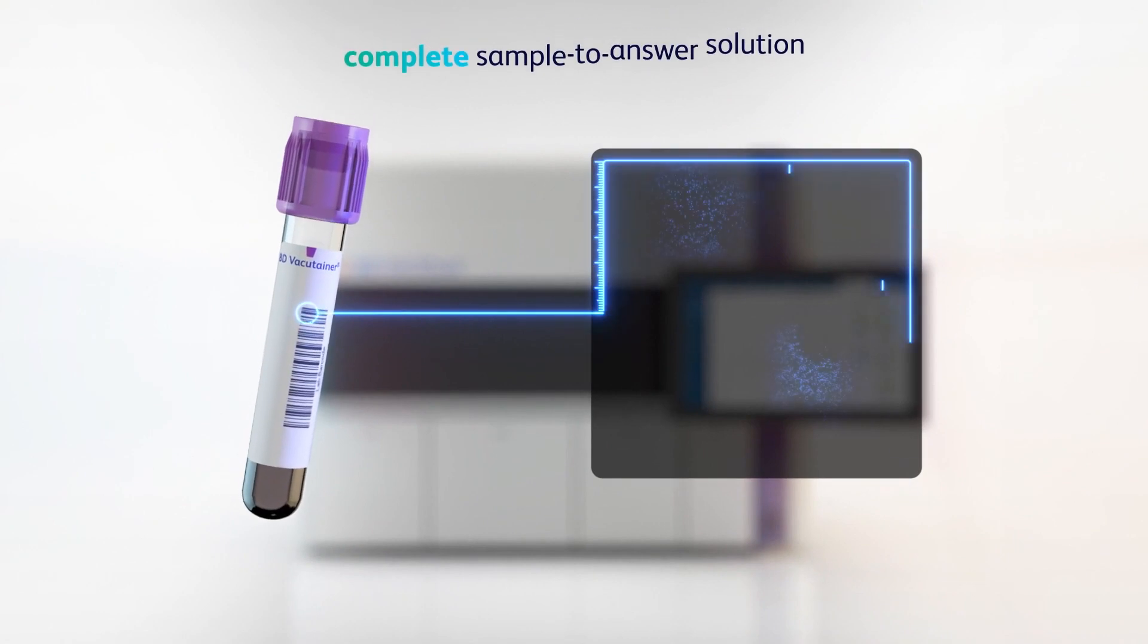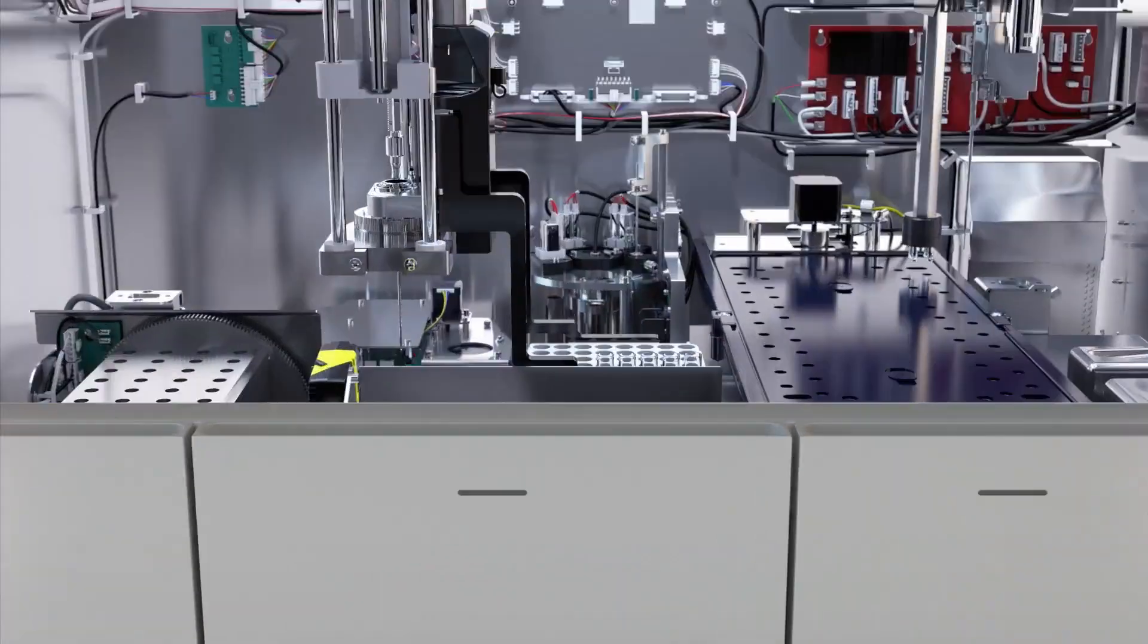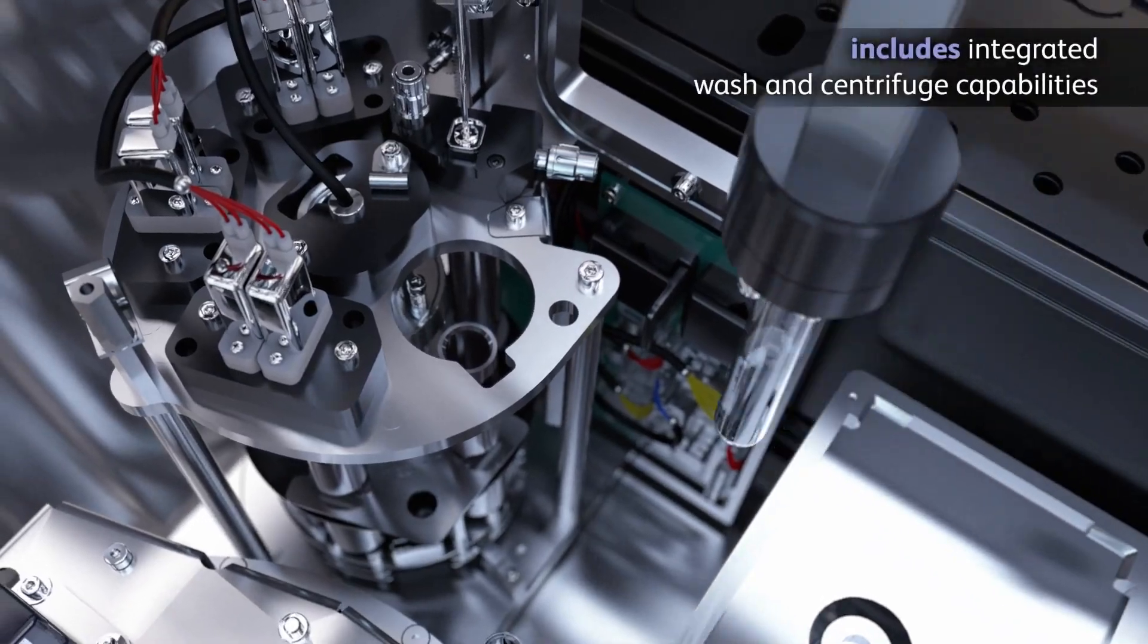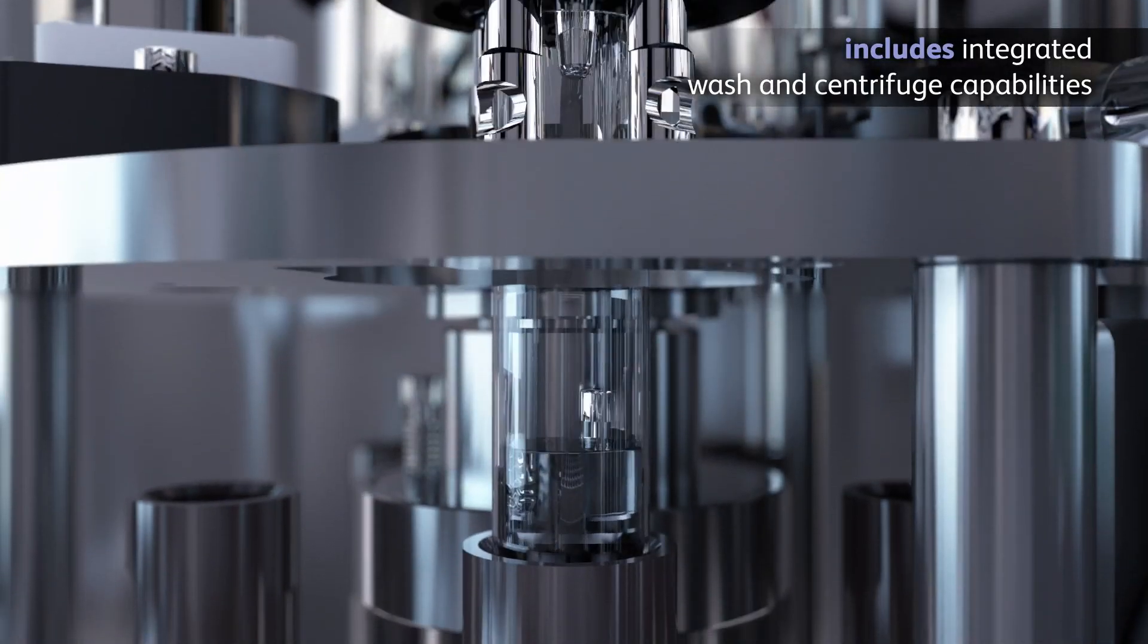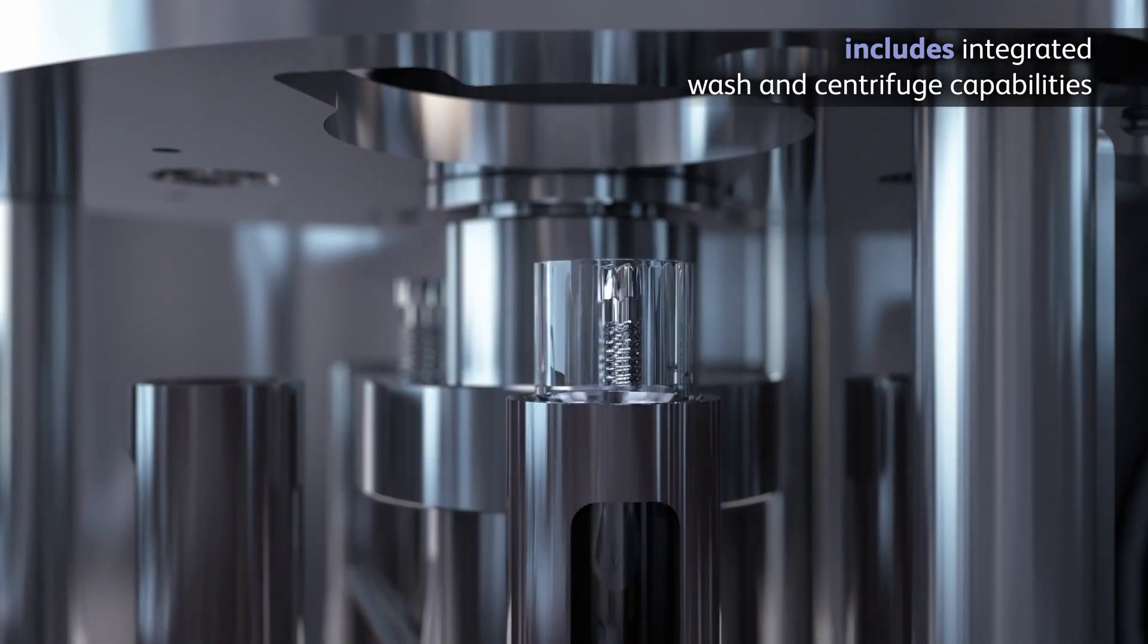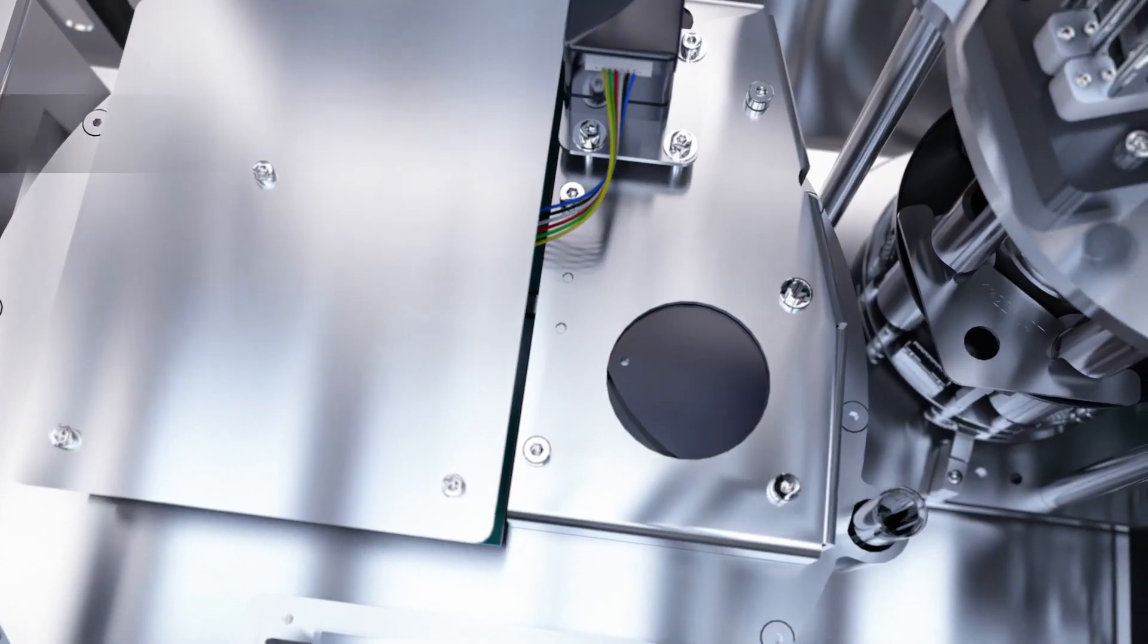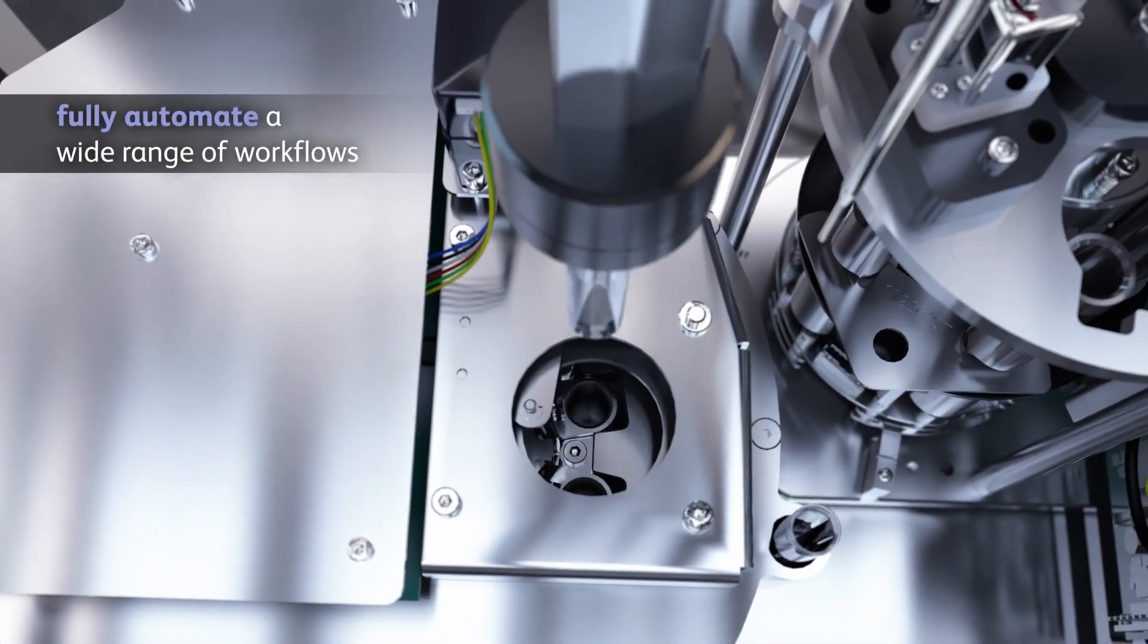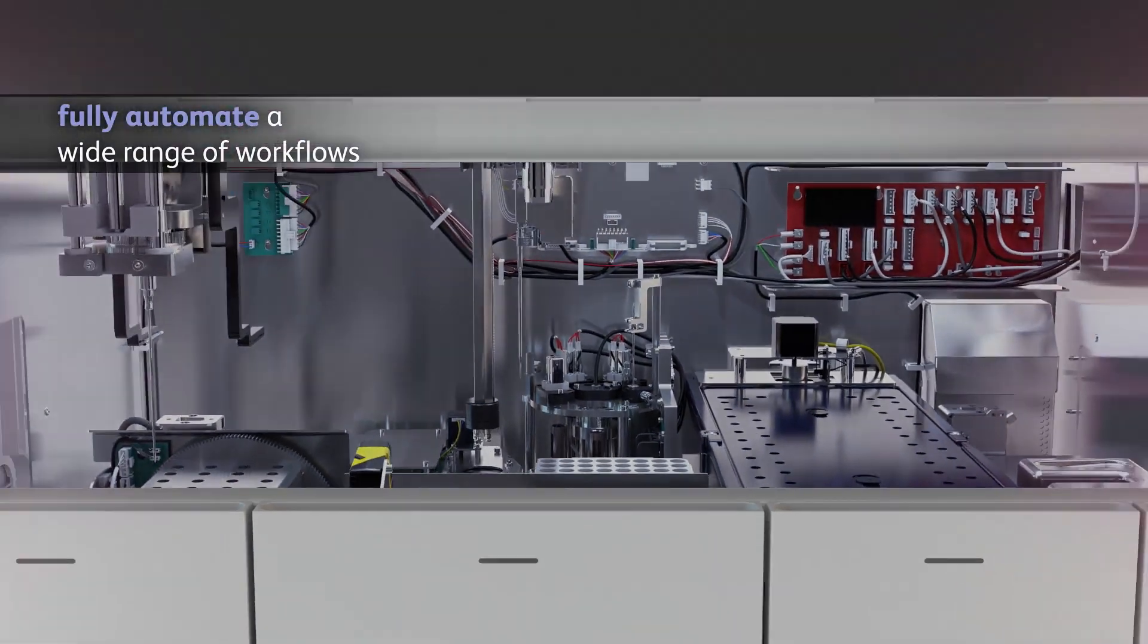A complete sample to answer solution that includes integrated wash and centrifuge capabilities, empowering you to fully automate a wide range of workflows.